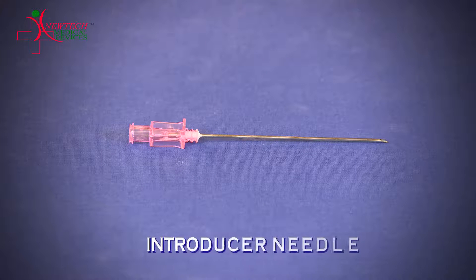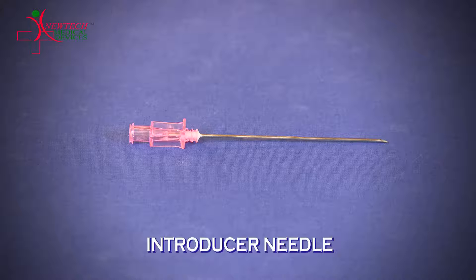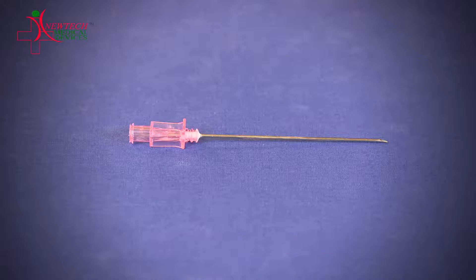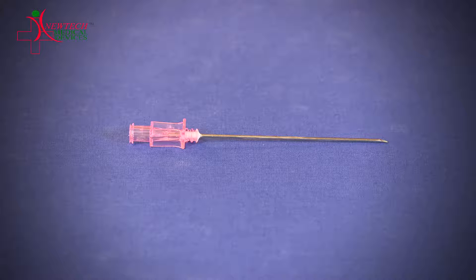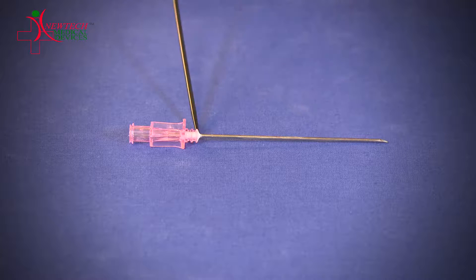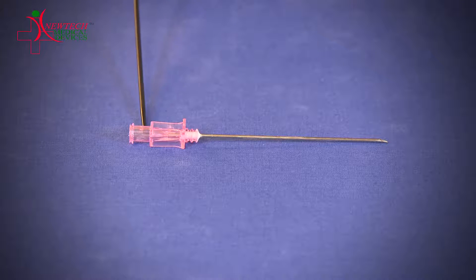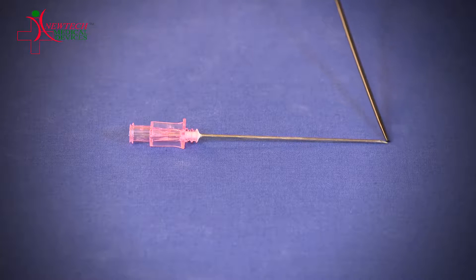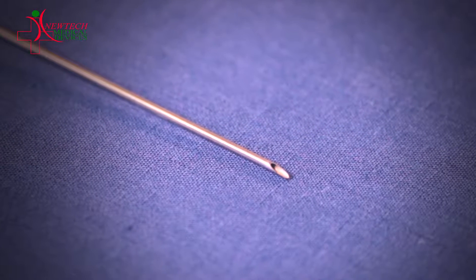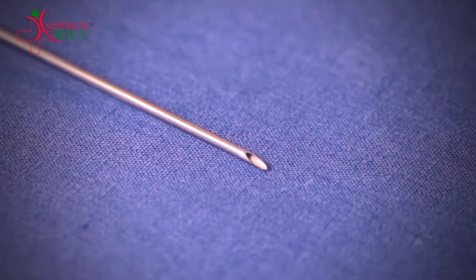This is an introducer needle. During the Seldinger technique, the first and foremost step is to puncture the vessel site. This is done with the help of an introducer needle. This is the length, this is the hub, and this is the tip of the introducer needle. It is very sharp and specially designed to penetrate the blood vessel easily.